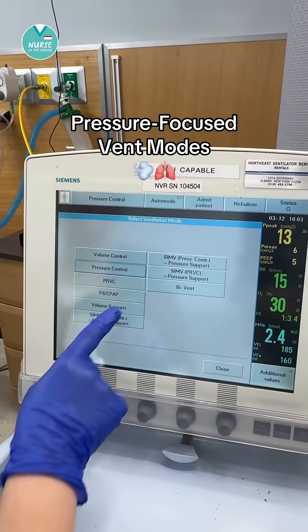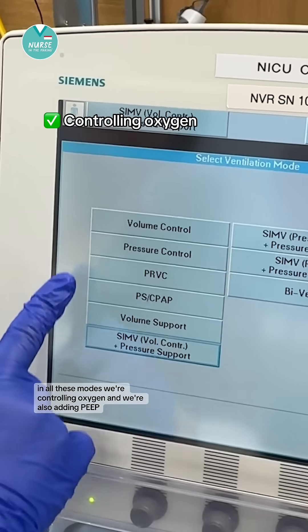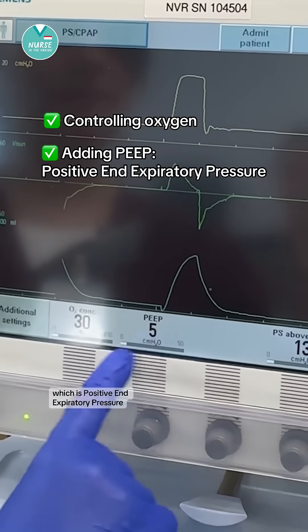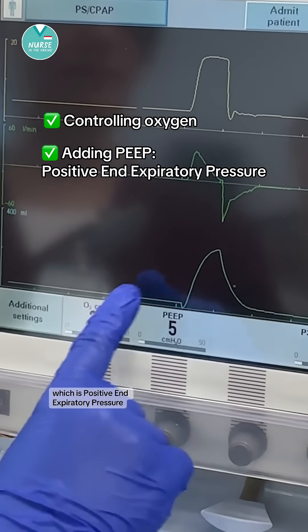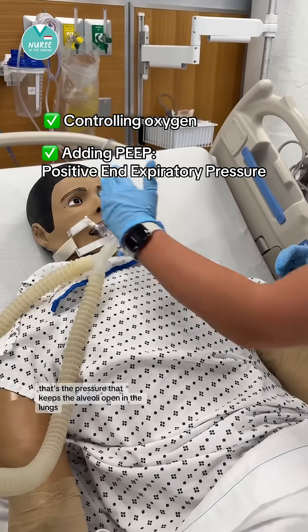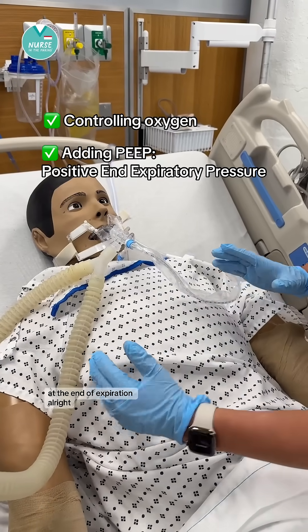Let's look at some pressure-focused vent modes. In all these modes, we're controlling oxygen and we're also adding PEEP, which is positive end-expiratory pressure. That's the pressure that keeps the alveoli open in the lungs at the end of expiration.